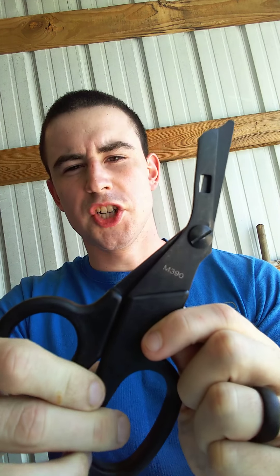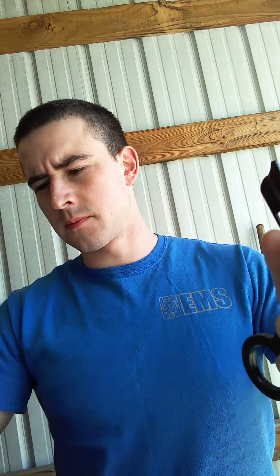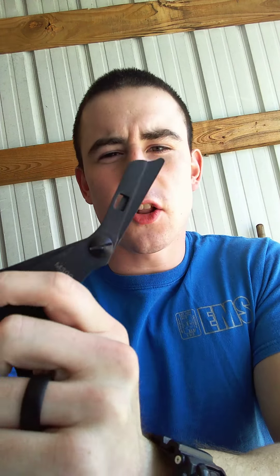How's it going, guys? Today I'm going to be reviewing the One Shear Trauma Shear. You can pick this up for $39 retail online. In their description: looking for a premium trauma shear everyone will want to steal. The One Shear will exceed your needs with its high-quality extreme heavy-duty steel and diamond-coated DLC blades, giving it a razor-sharp edge, best hardness in the industry, scratch resistance, far superior corrosion resistance, and amazing black finish. So, is it worth paying $39 for?